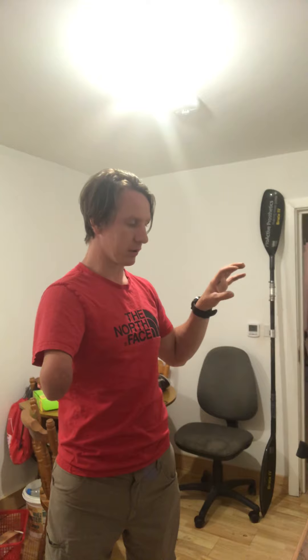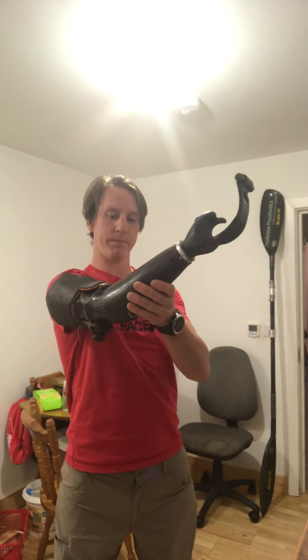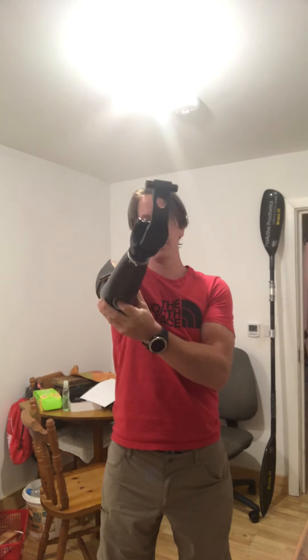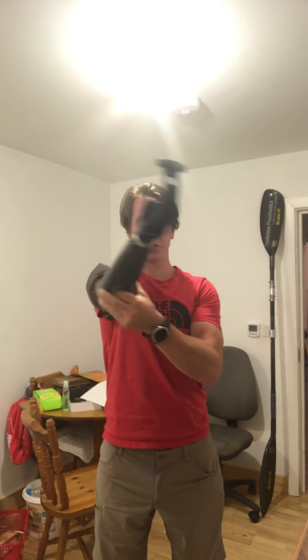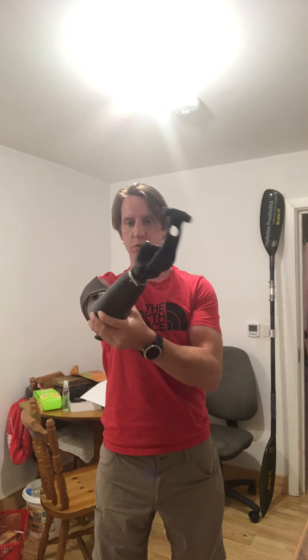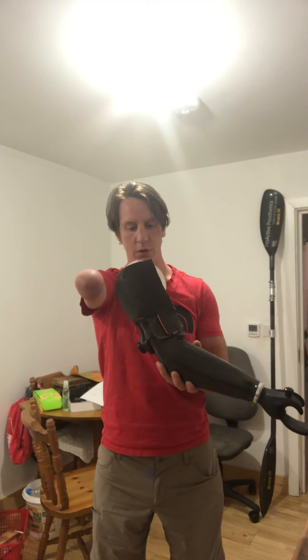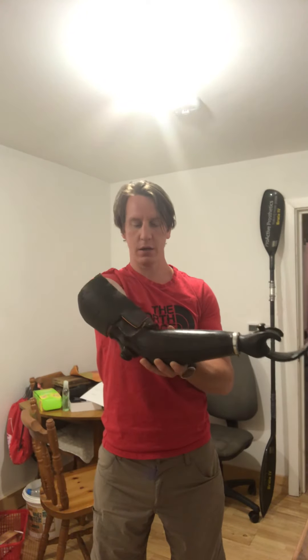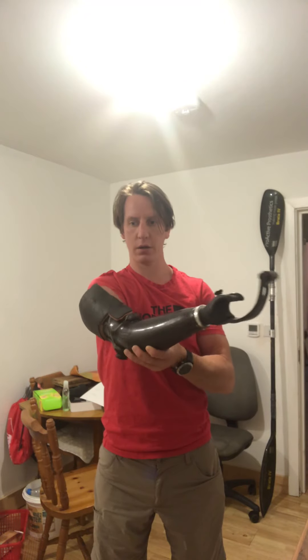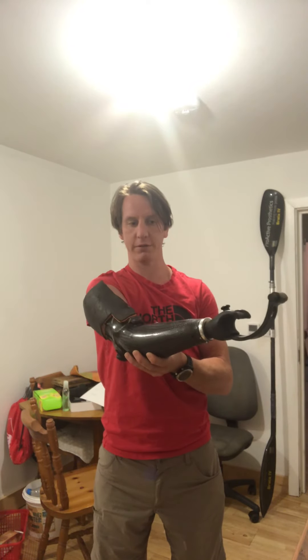The other thing about having that bend in the elbow: if we think of the hole as being the center when it's on my arm and I'm pushing either way, by having that angle I'm giving a bigger rotational lever for the arm, which affects how the socket fits onto my stump. Over time, with sweat and everything else, I'm just creating another range of movement which is slowly letting the arm slip off and affecting the fit.